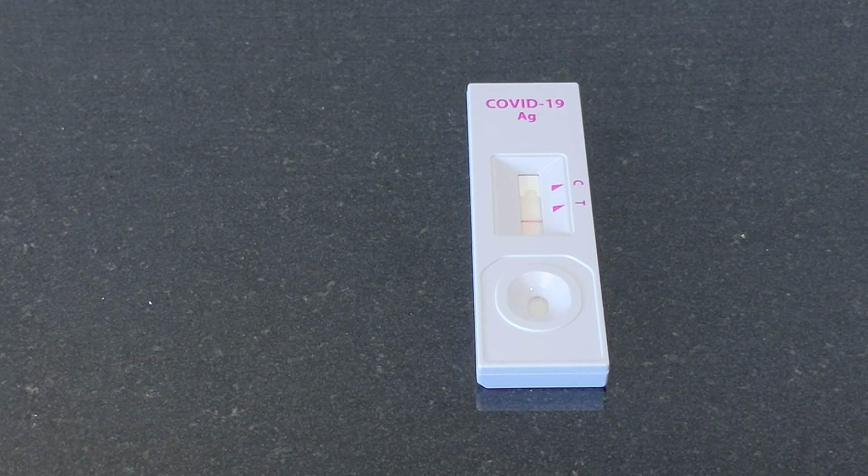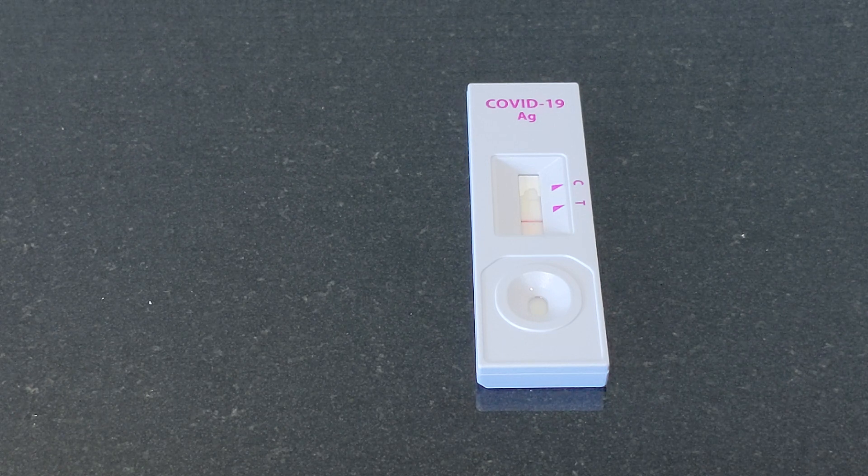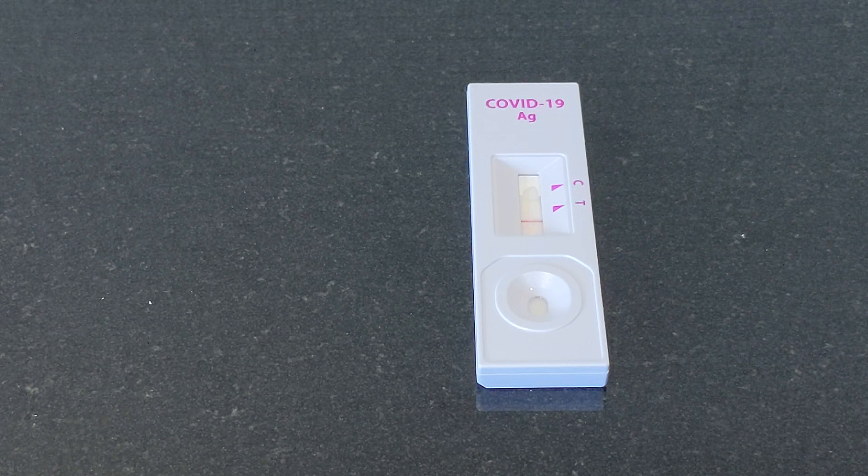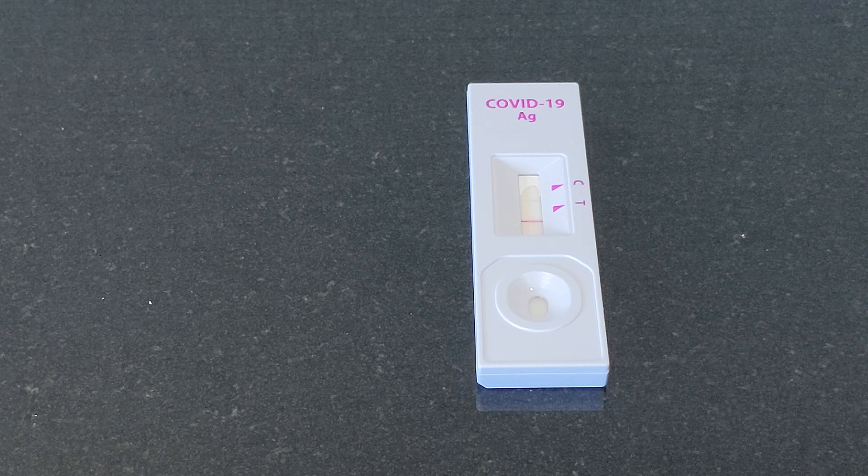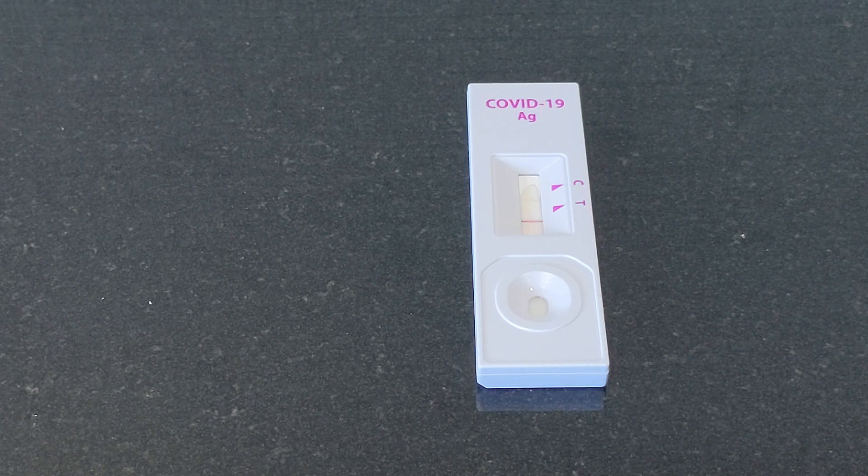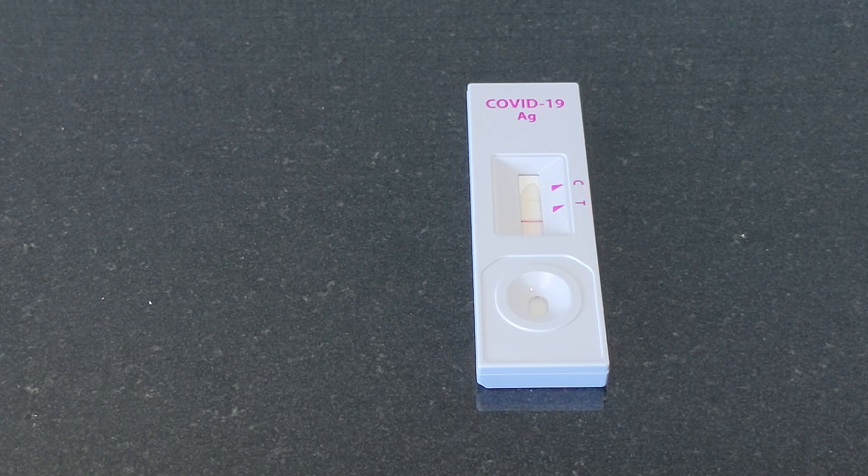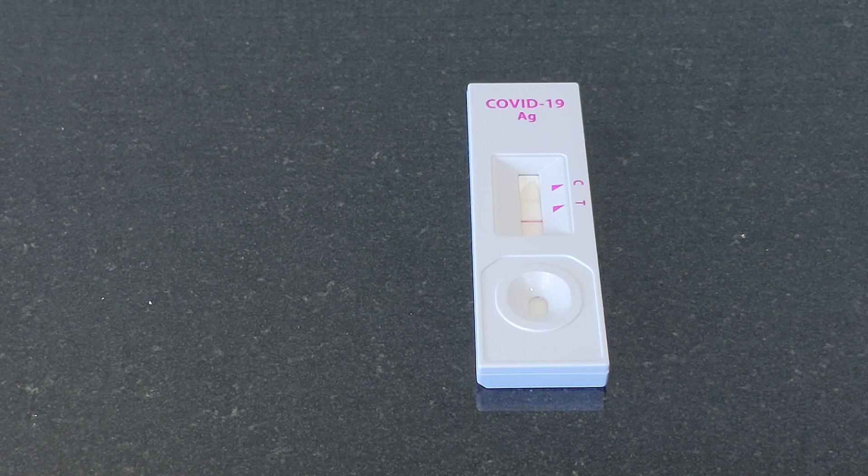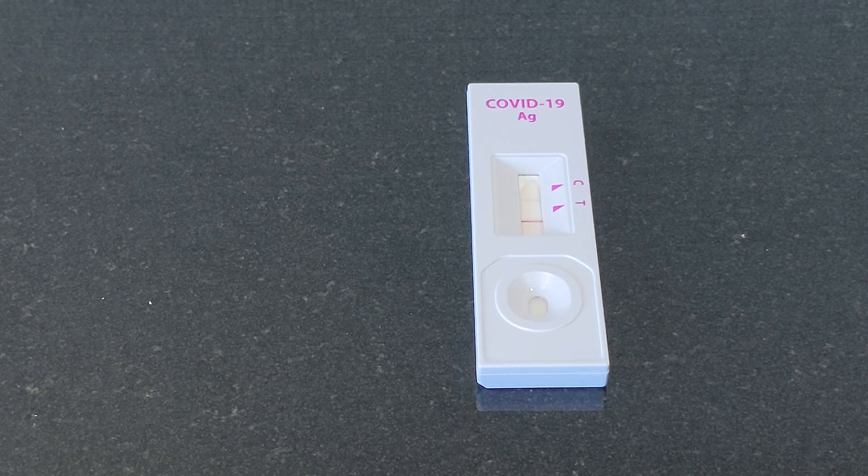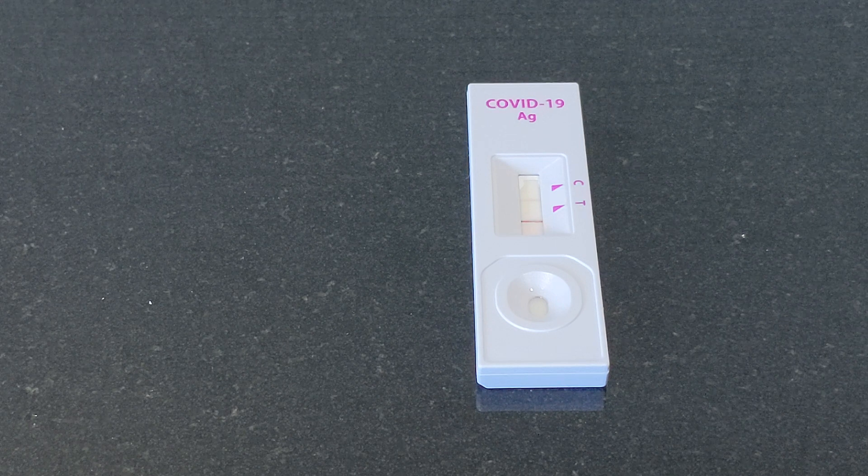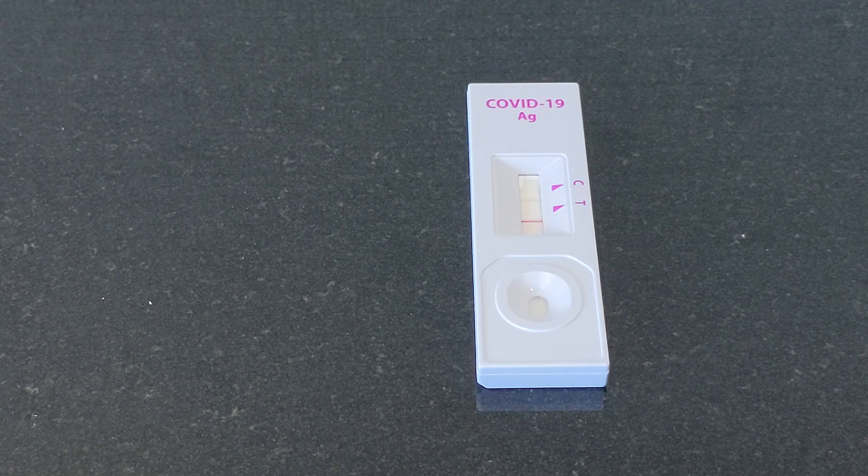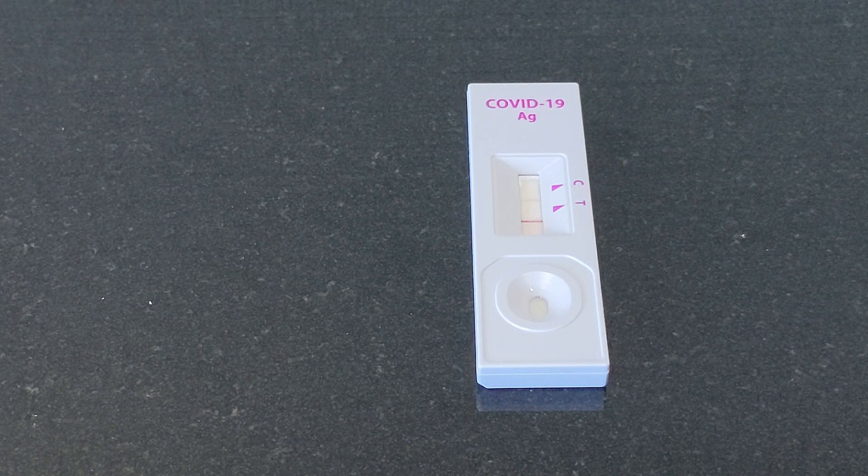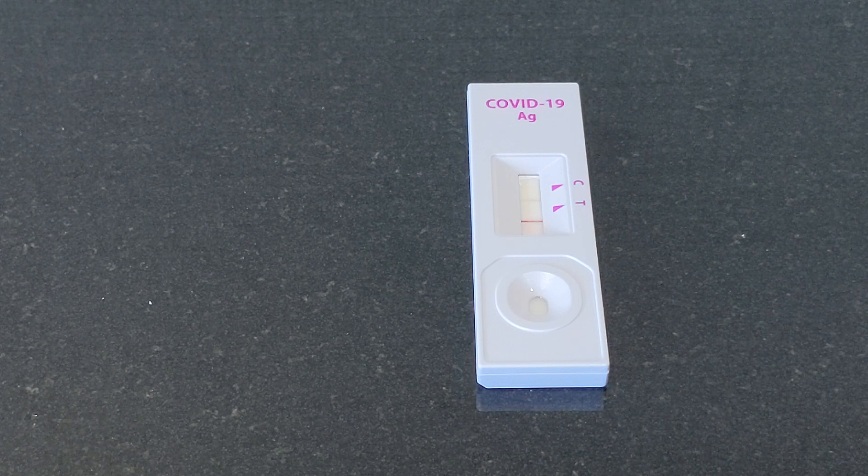So I will stay a little bit longer to show you how it works. So my virus seems quite strong. Yesterday when I tested, the T line was actually shown quite faded first. But today, it's like a very, very sharp and deep T line over here.